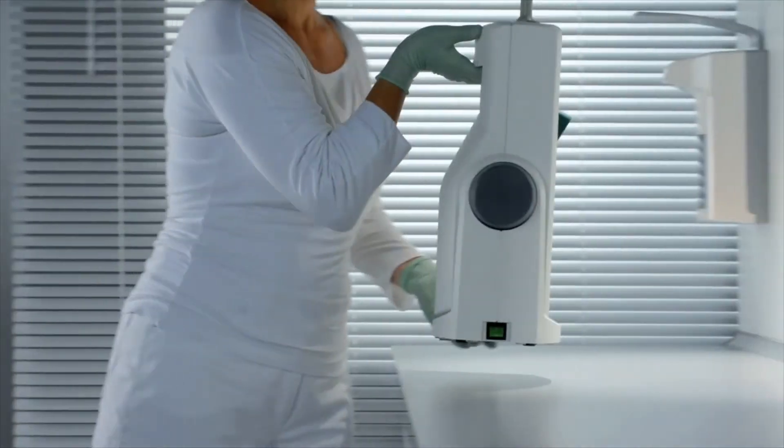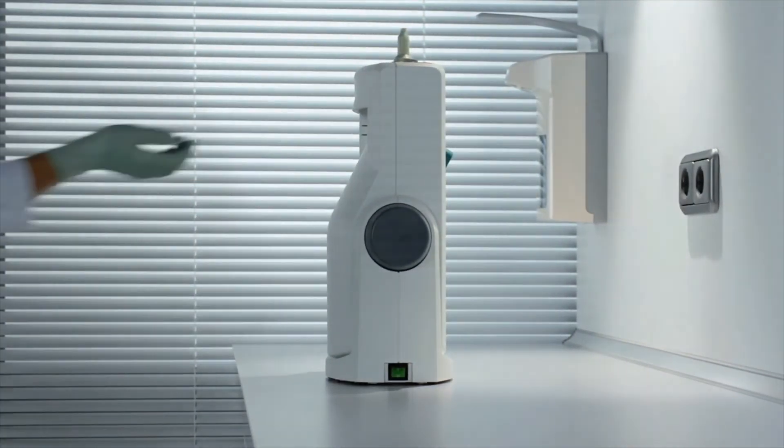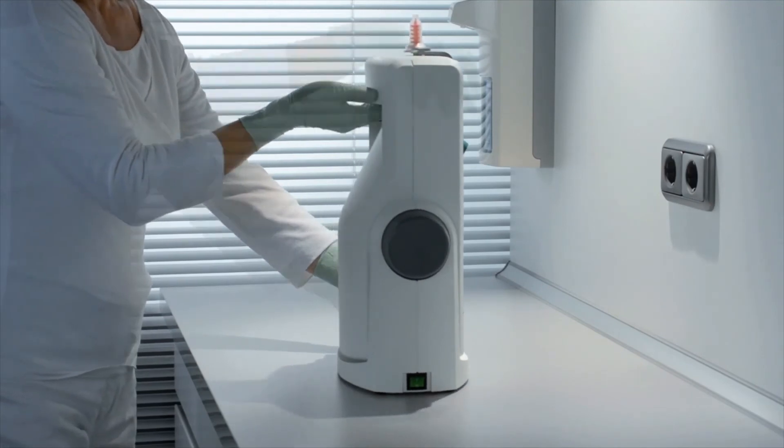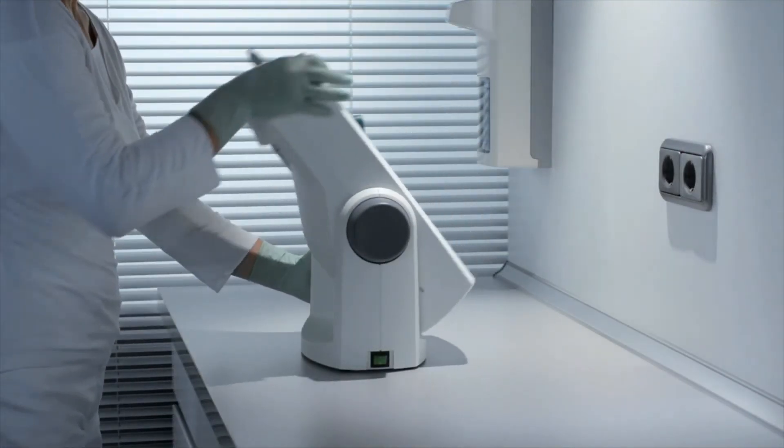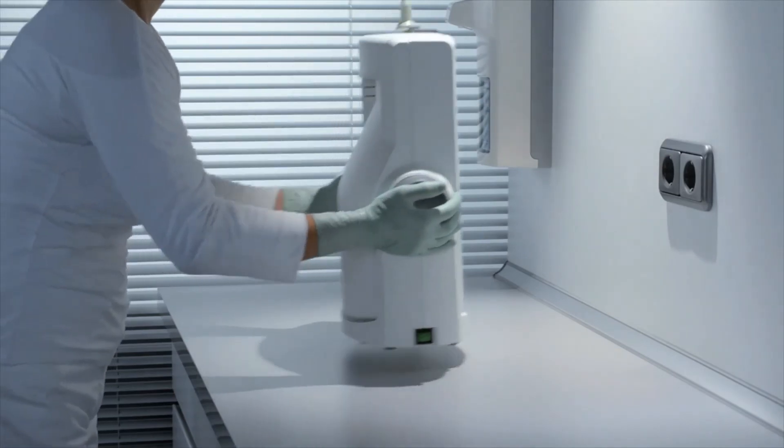With its lightweight, integrated hand grip and portable design, the PentaMix Lite Unit is easy to share between operatories. When not in use, it saves valuable space by simply swiveling to its upright, standby position.